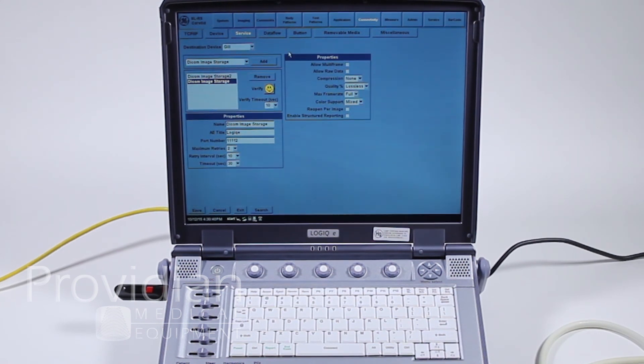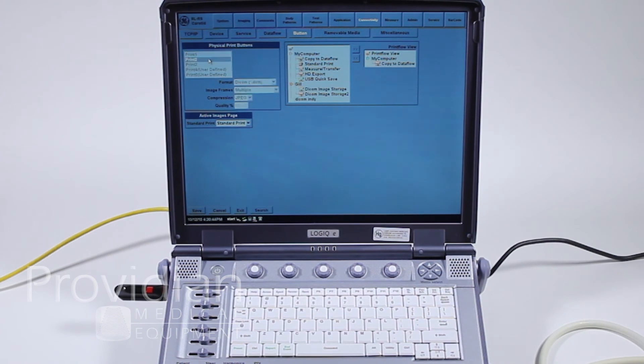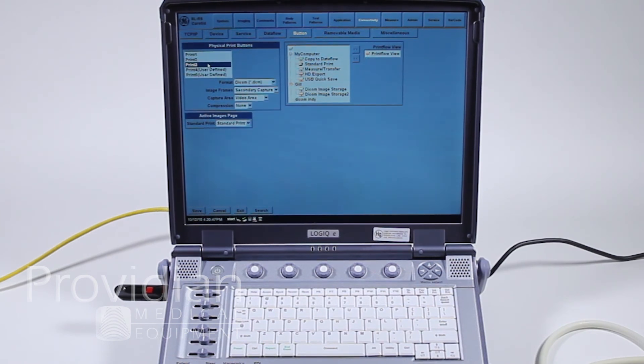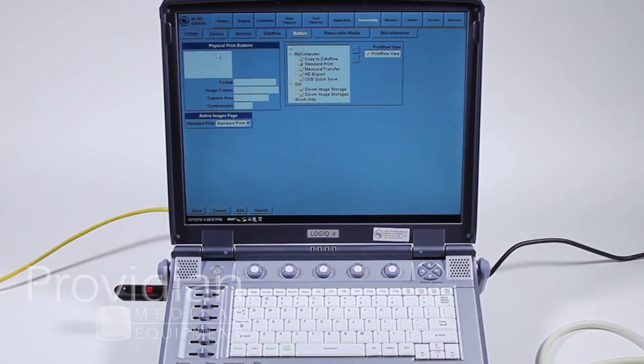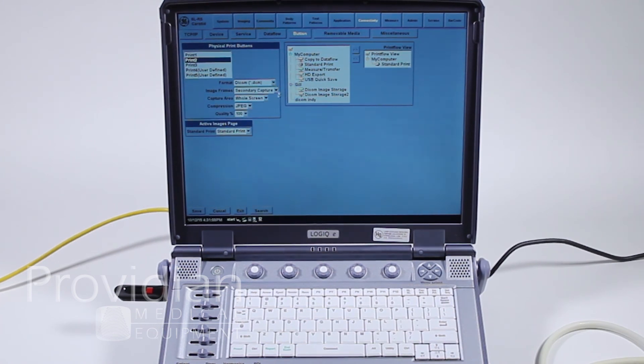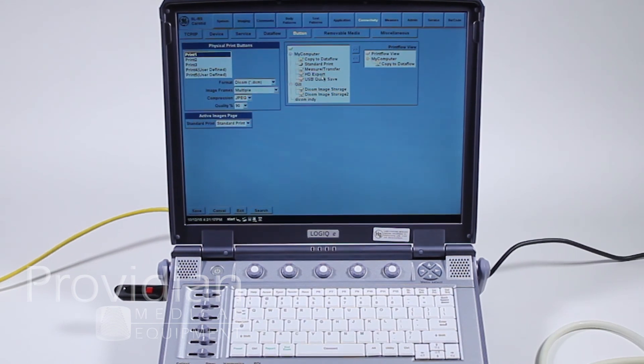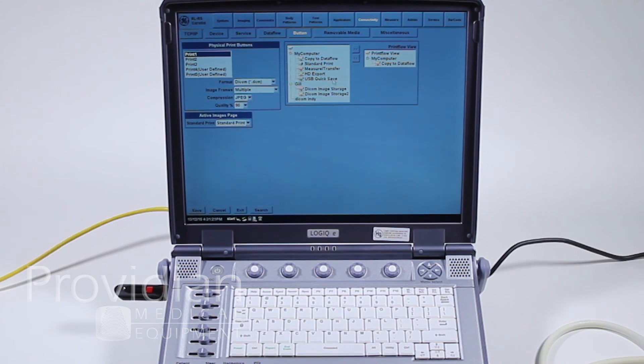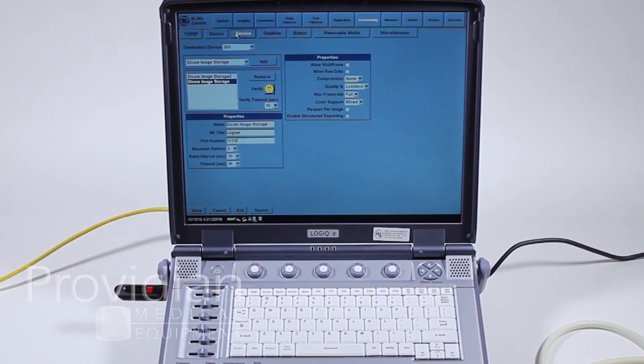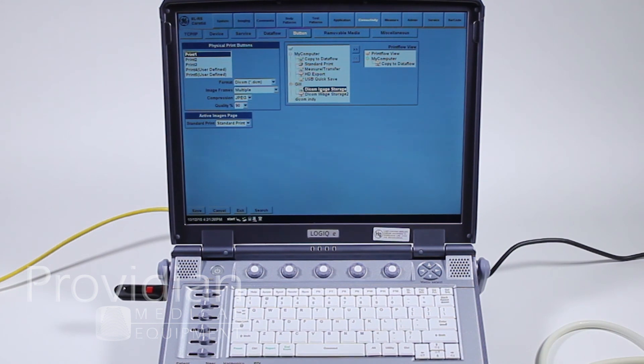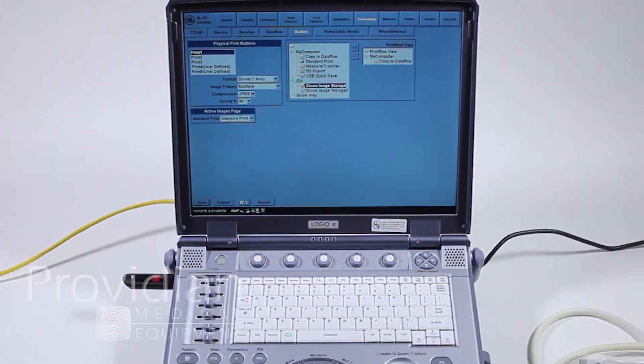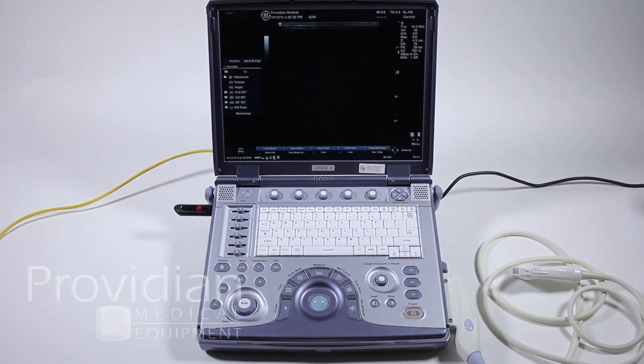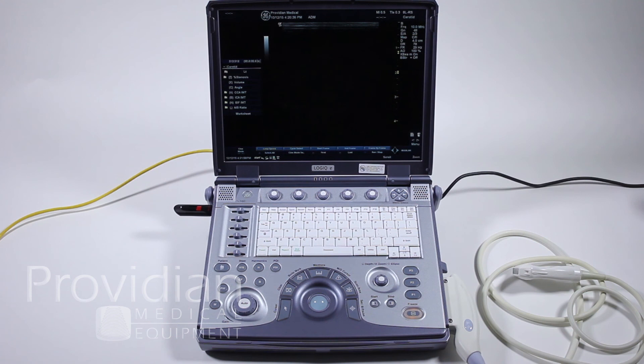Once you've done all that, you can choose a button here. Here we can assign print 1, print 2, and print 3, and these print 4 and print 5 can be user-defined up here. I've got P1 to save as a DICOM image to the hard drive. Print 2, I can send in a different format, and then here you'll see that I have this DICOM image storage. I can choose for it to save for USB quicksave, HD export, USB quicksave means I can plug in my USB, hit print, and it'll go directly to the USB. For my DICOM image storage, I would click here. I did not set up a device or service for that, so it's not going to allow me to select it. But I do have a service, this DICOM image storage here. Then we would click Save, save the changes, and exit. If you want to add DICOM prints or DICOM storage commitment or any of those services, you would follow those exact same steps each time.